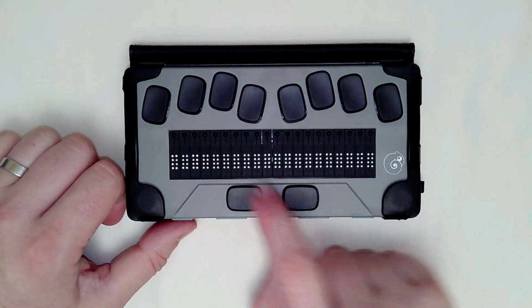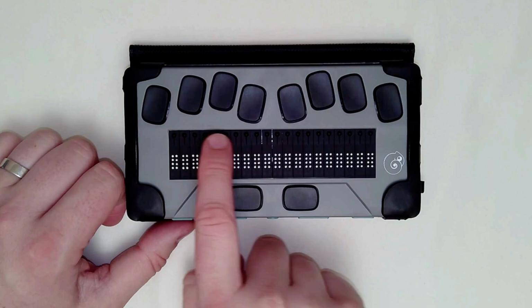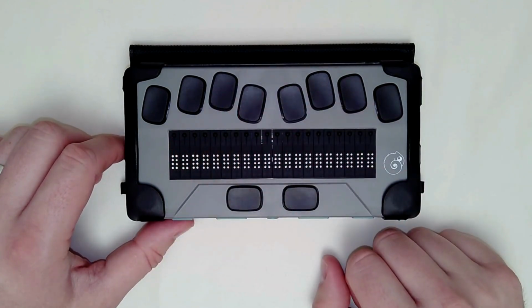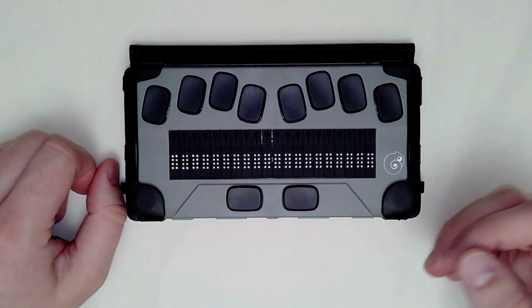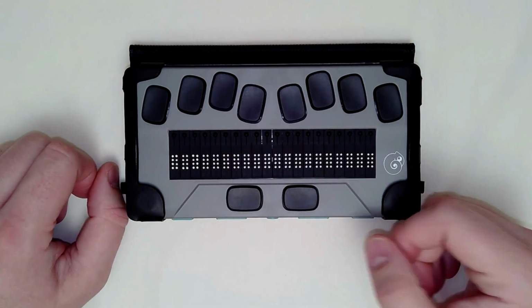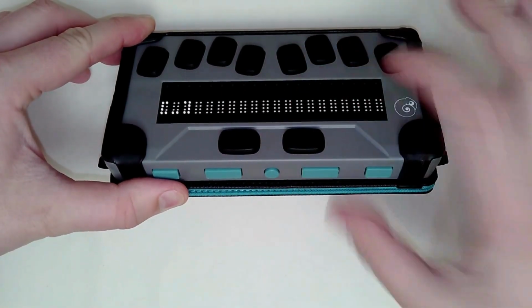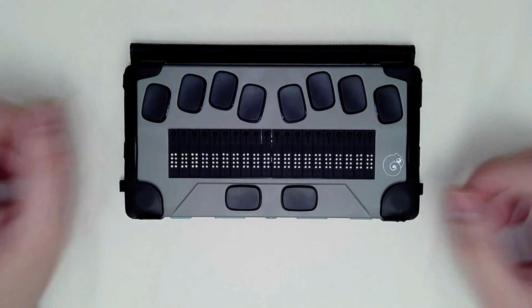The second way to do it is to use a cursor router key. So there is a little bump above every single one of your braille cells. These are your cursor router keys. They would normally, while editing, be used for moving your cursor around your document to edit, maybe correct a spelling. But when you are in, again, a menu or a list, you can press any of those cursor router keys to double as an enter to select things. It does not even need to be the cursor router key directly above the braille label that you're currently popped up on. It can be anywhere, middle, end, it does not matter. You can press any of those 20 to select the current item that you're on.